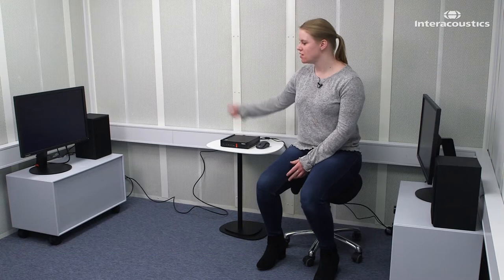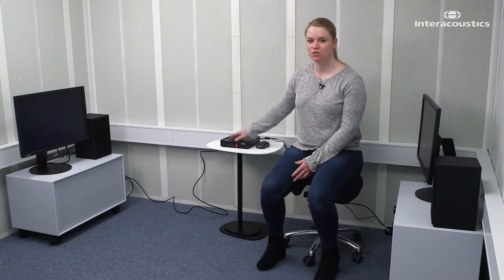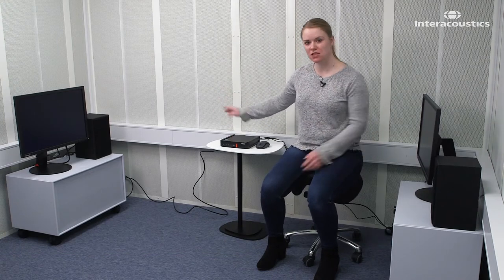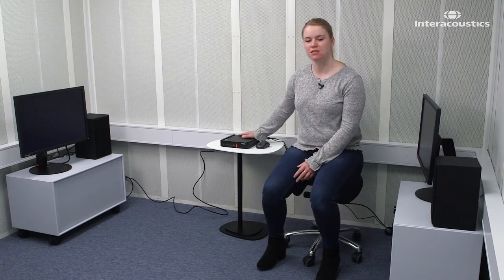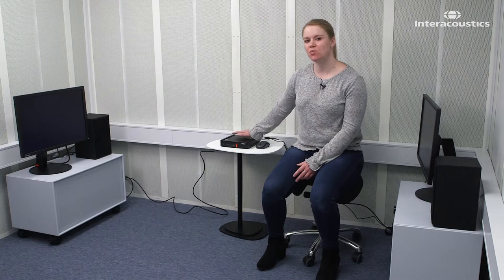And then, of course, power supplies to both screens and the PC. And then you're basically ready to go.